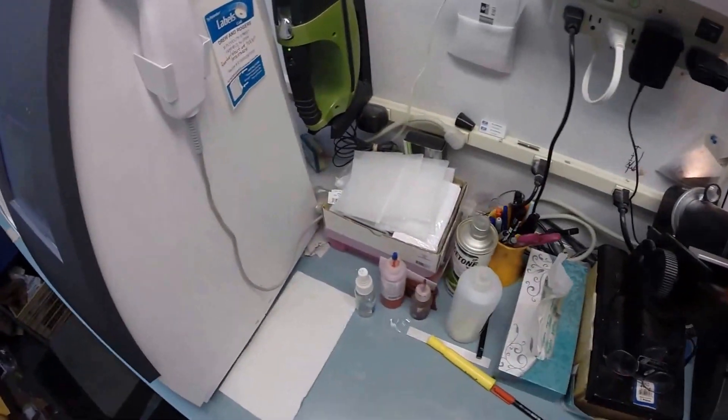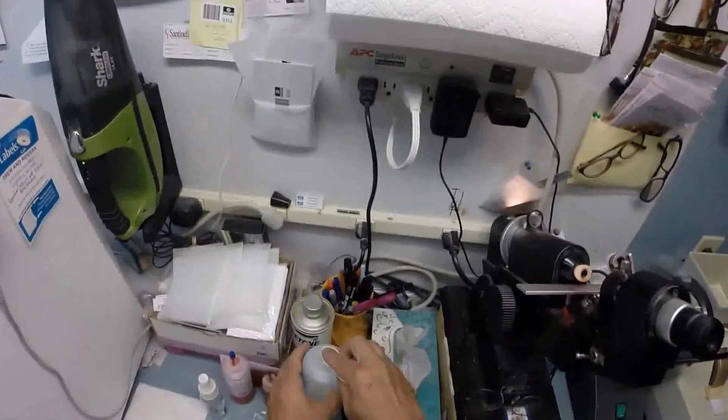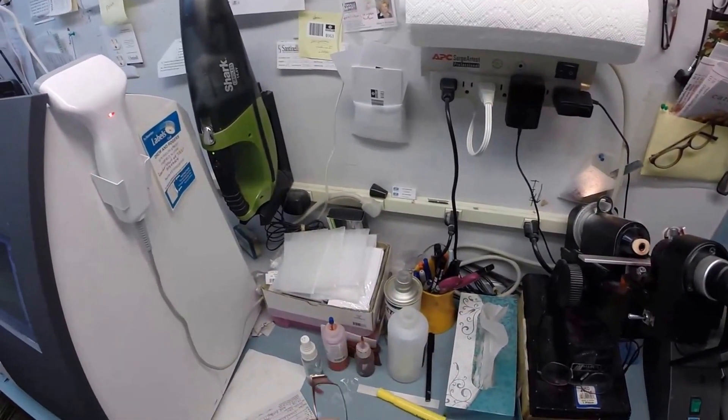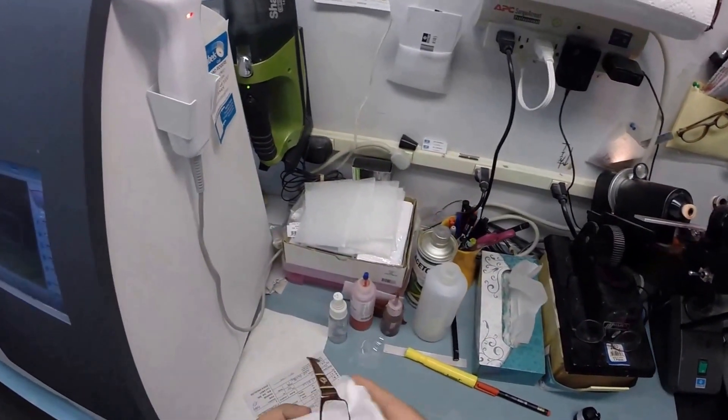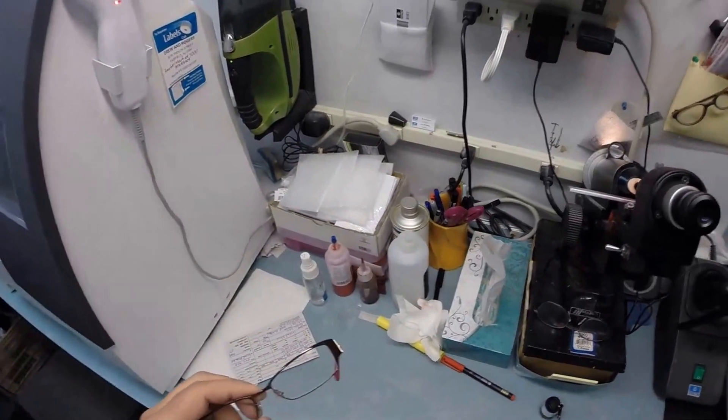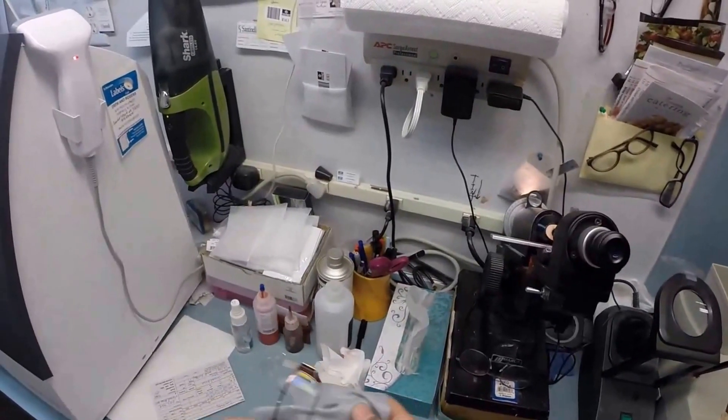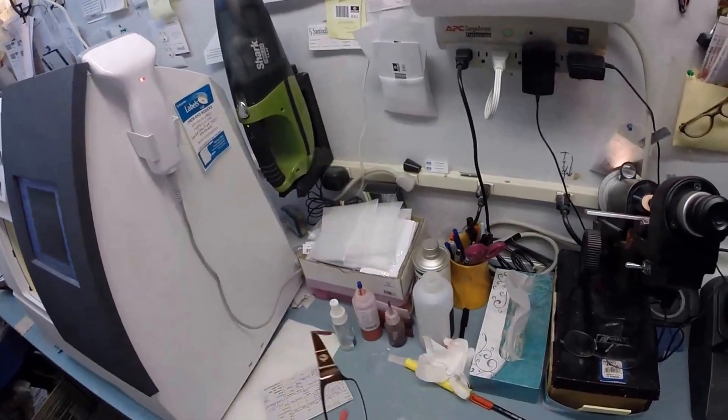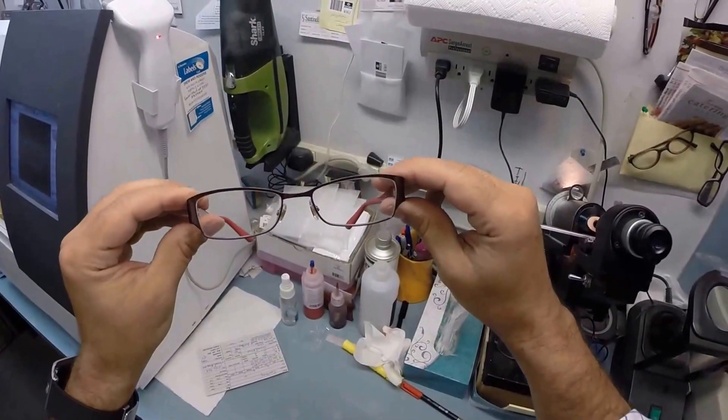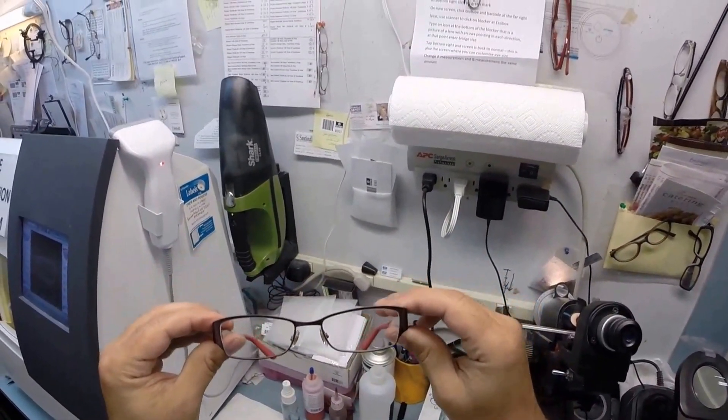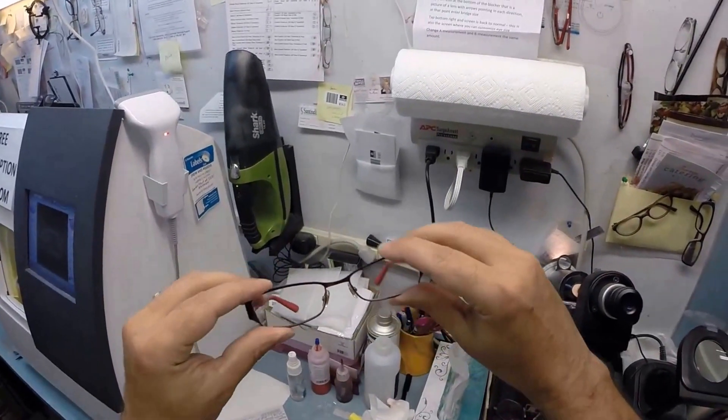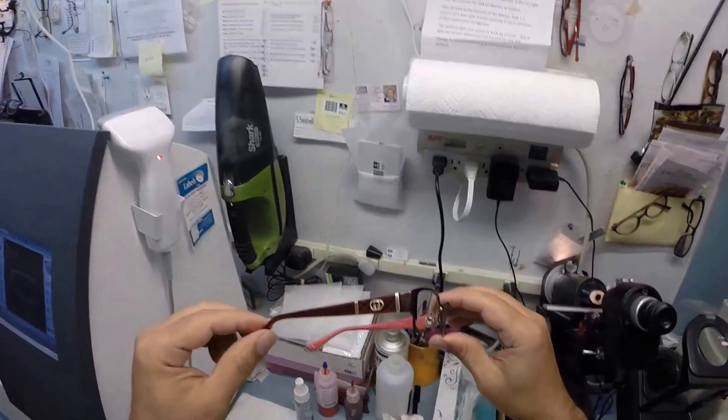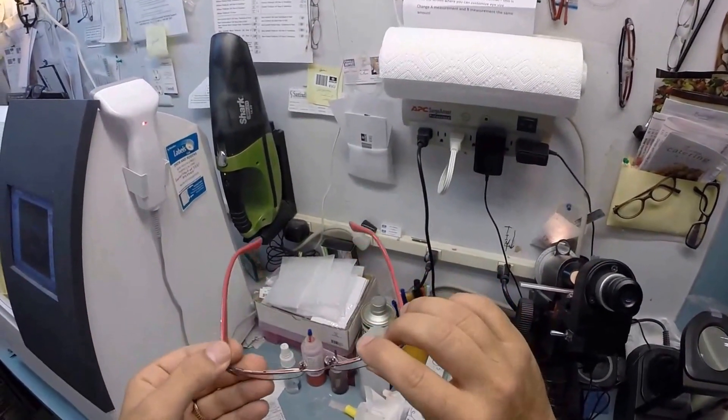And where am I going to do here? Oh, this is the point in every video that while I clean the lenses, and of course free shipping anywhere in the United States. But when I clean, after cleaning the lenses, I explained that when you get these in the mail, and of course, I'm getting redundant, the Department of Redundancy Department, but it's free shipping anywhere in the United States. But when you get these in the mail, there's a small chance that these could fit either too loose or too tight. However, there's an 80% chance that one side is going to sit higher than the other. That is because 80% of people have one ear that is higher than the other. And because of that statistic, 99% of all optical shops do free adjustments if you ask them.